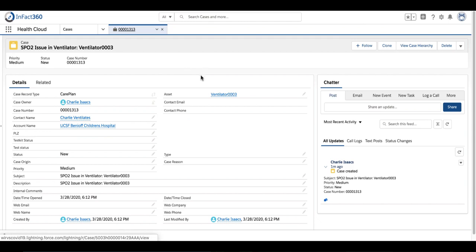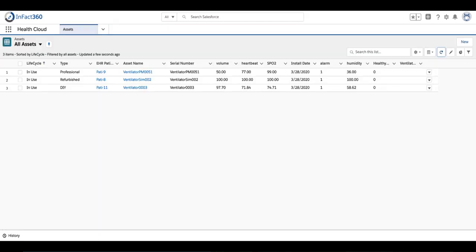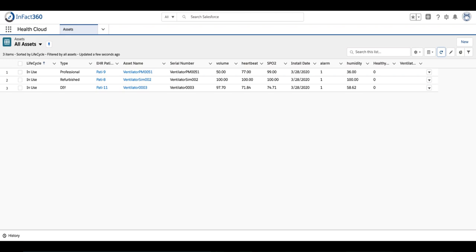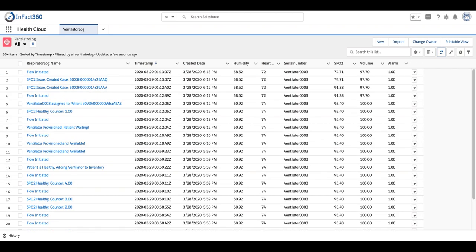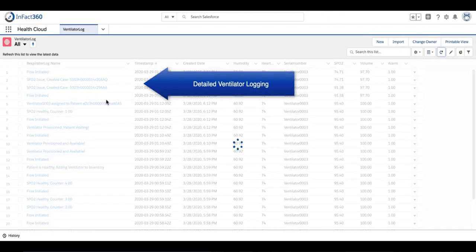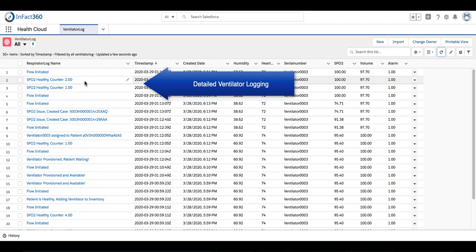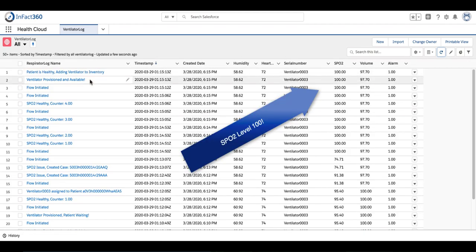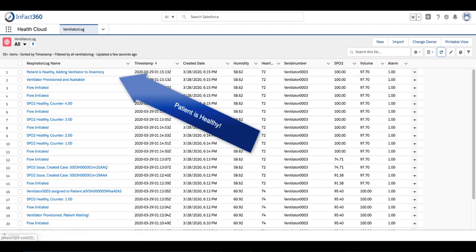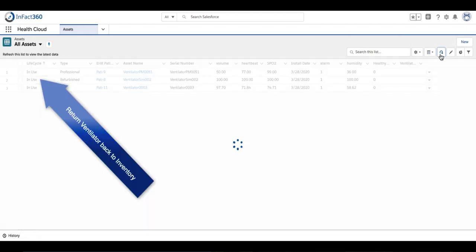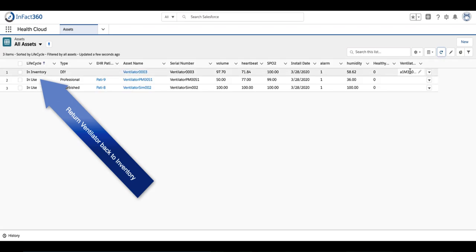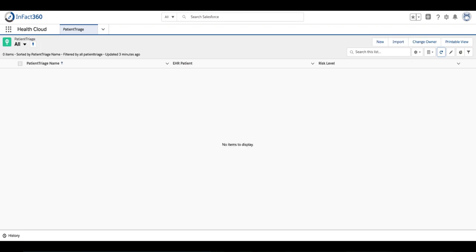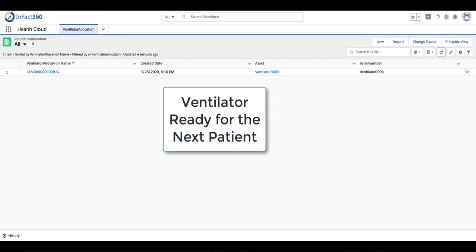And you see there, sure enough, a case is created in Service Cloud. Since our patient has received excellent care from our do-it-yourself ventilator, they are now recovering. We're going to crank the SPO2 levels up to 100. After five test cycles with the patient over a period of time, if their SPO2 levels are healthy, it's going to return the machine back into inventory and notify the doctor that their patient is on the road to recovery.